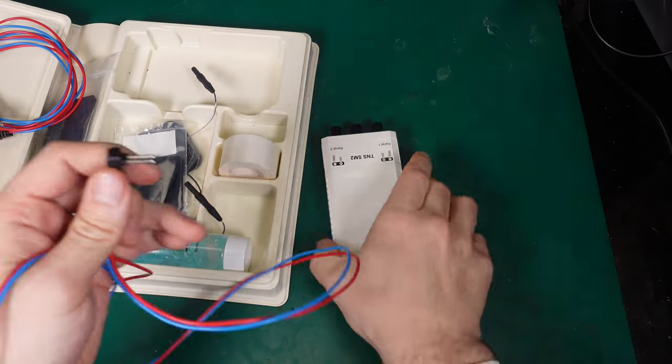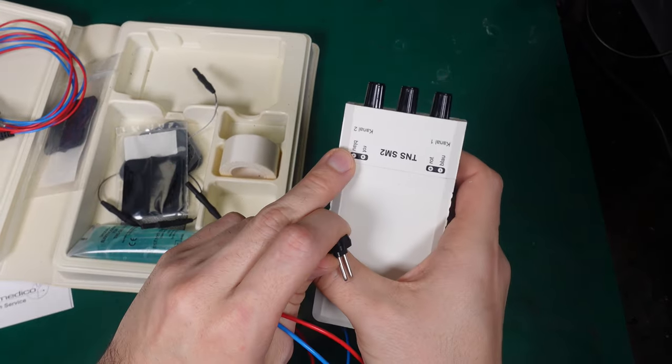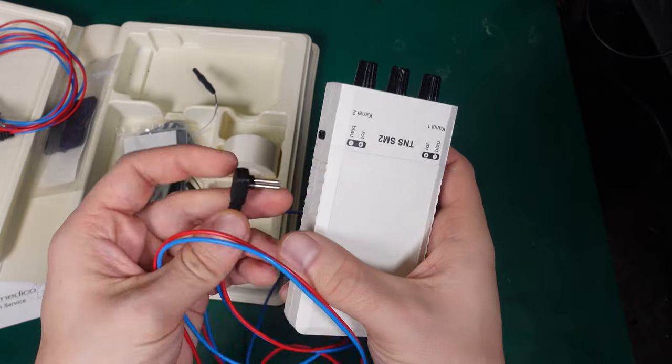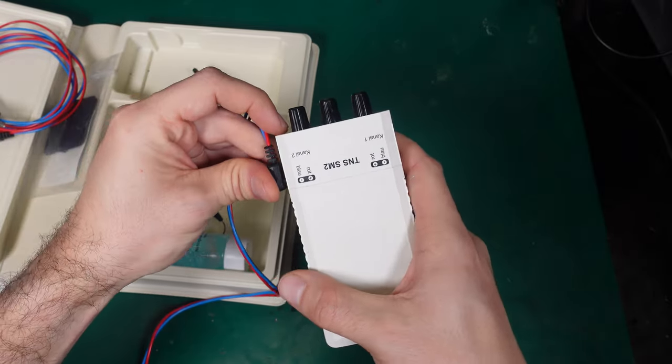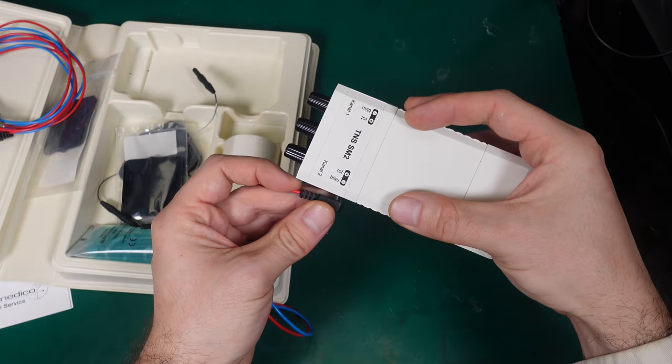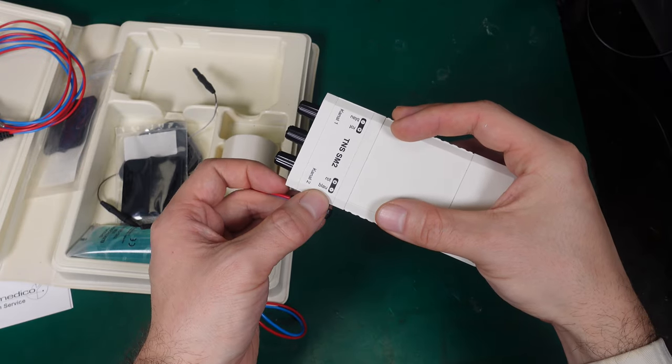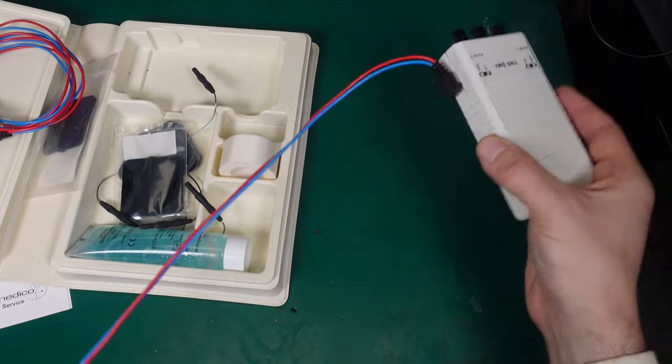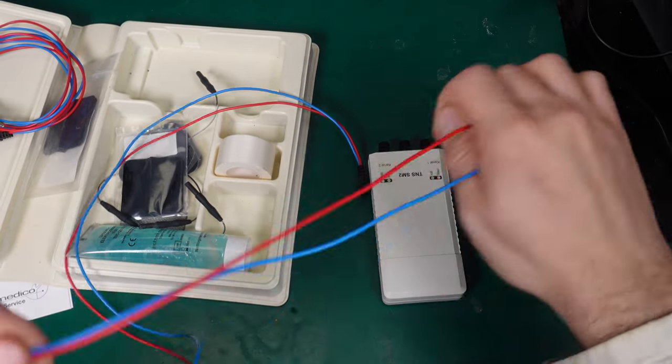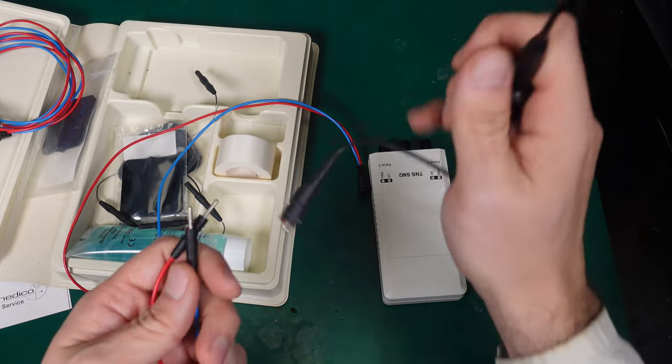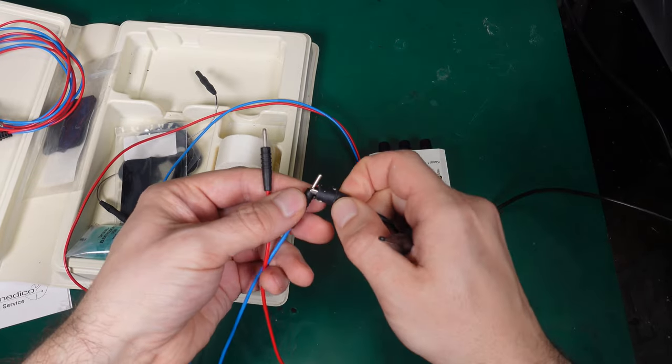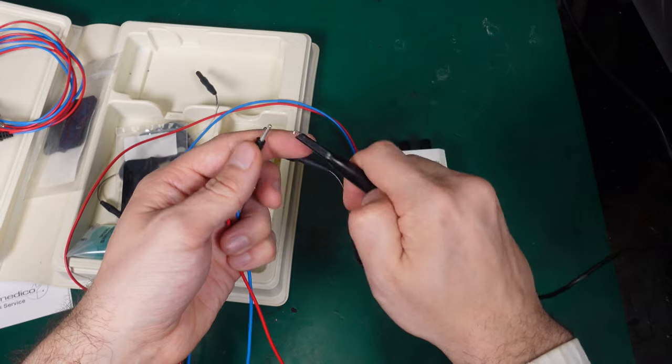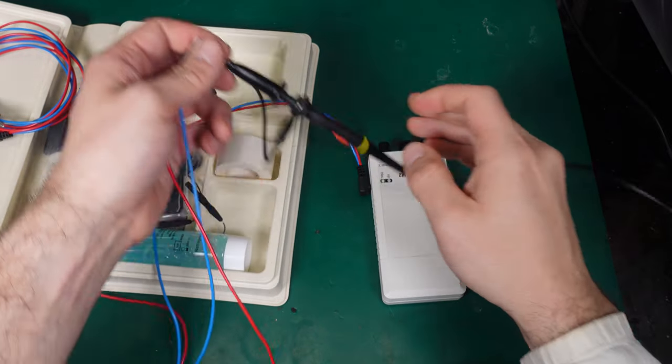Let me grab, we've got the red and blue, so we go in that direction. Red, blue, and I'm going to attach my ground clip to the blue one and the positive to the red.